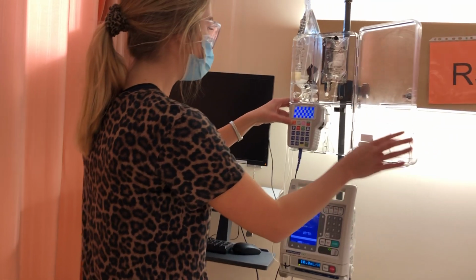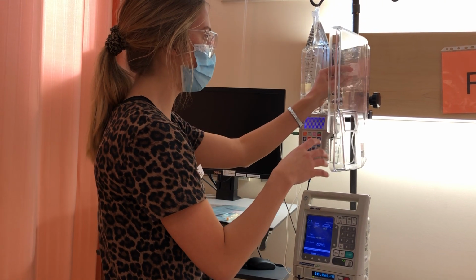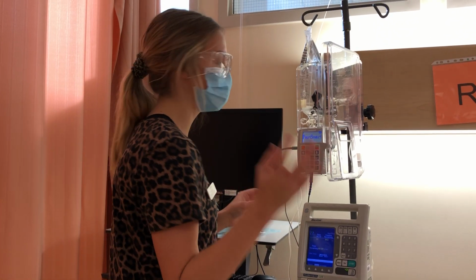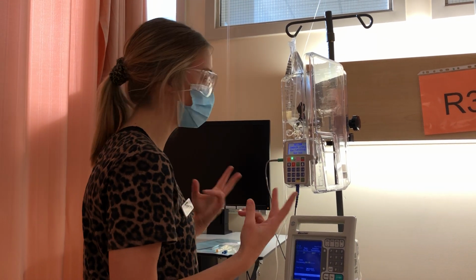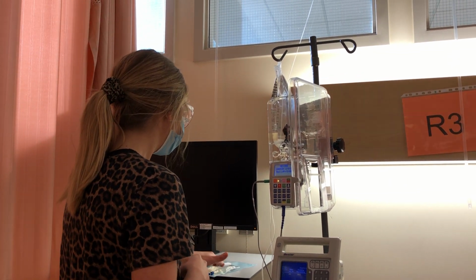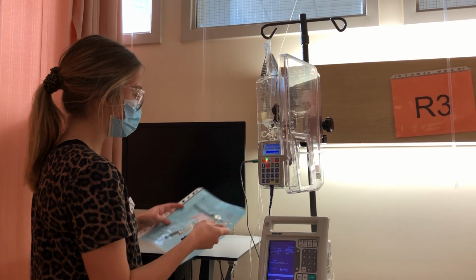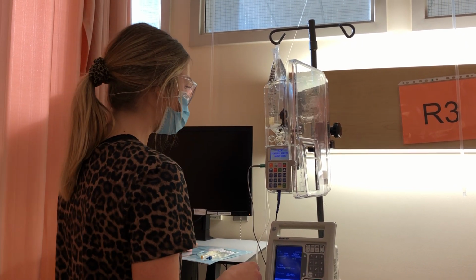I would note the volume and dose that were in the bag previously, and I would document that. And if there was waste, I would get my second nurse to waste with me, or my 2 nurses because I'm a student nurse. Just turn this on here, and then when I put this into the pump, I'll be looking at my bag and my MAR to make sure that I have the right information in.